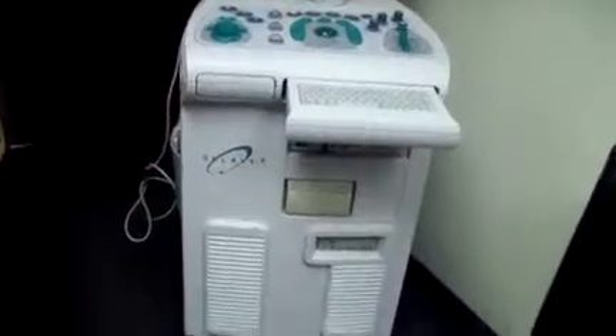Hey, it's DCSP Medical. We're looking at a Boston Scientific Galaxy 2 ultrasound. It powers on and has a recorder as well as a printer and DVD writer.